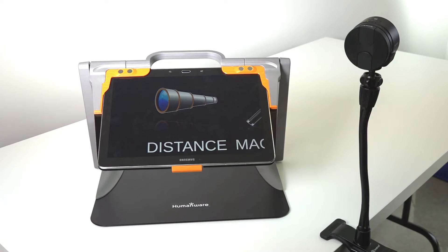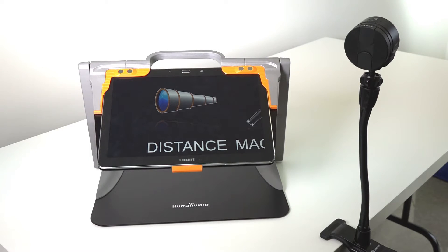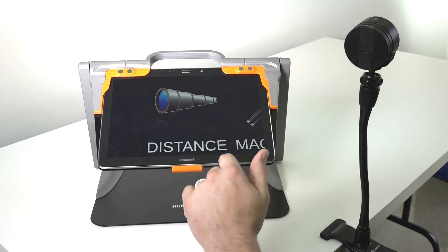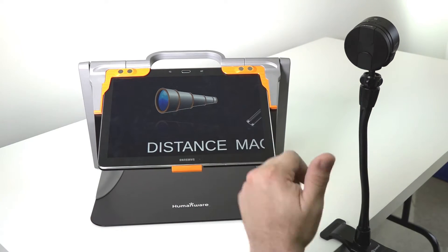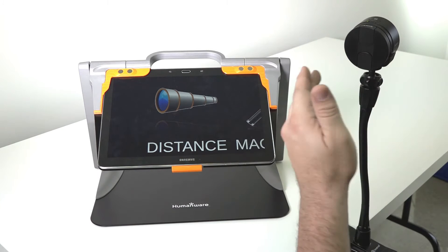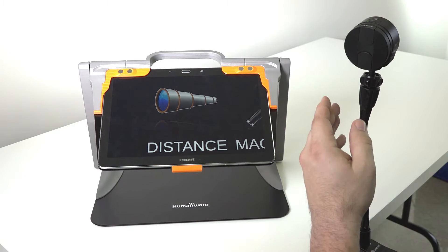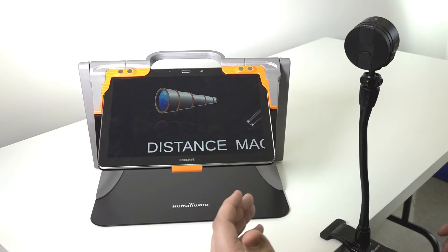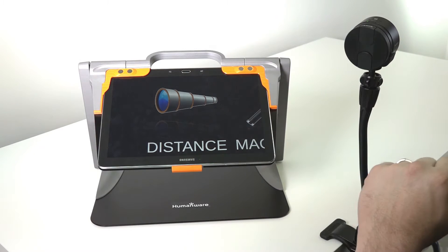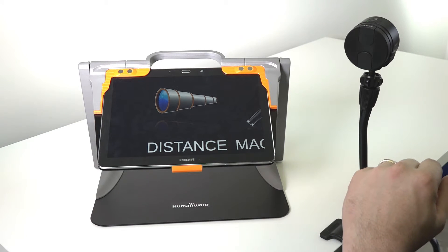Prodigy Connect 12 also has a distance camera as an option. From the main carousel, simply tap on distance and the camera that's wirelessly connected to the tablet allows 30 feet distance between both and will wirelessly transmit the image that's at a distance.